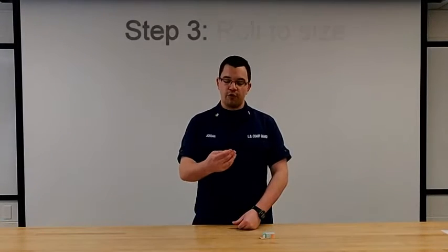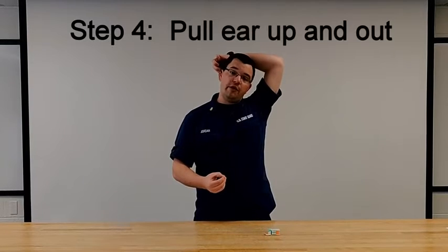Step 3: Roll the plug between your fingertips. Step 4: Reach over your head and pull your ear upward and outward.